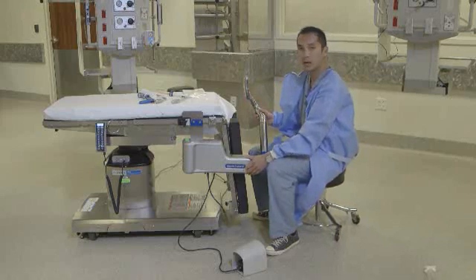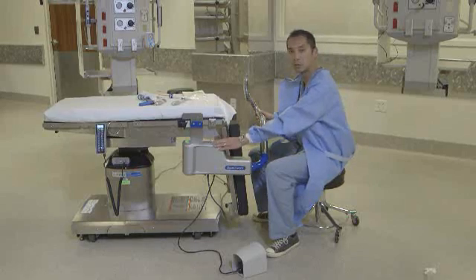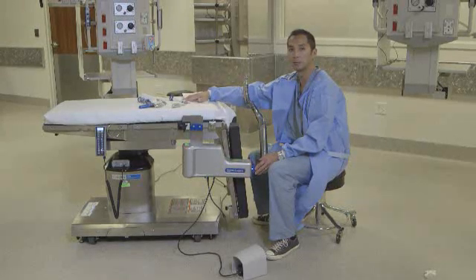What I'd like to do is spend some time today talking to you about how you utilize the Ally UPS — first in terms of attachment to your operating room table, as well as integration with the variety of uterine manipulators that are available through Cooper Surgical.